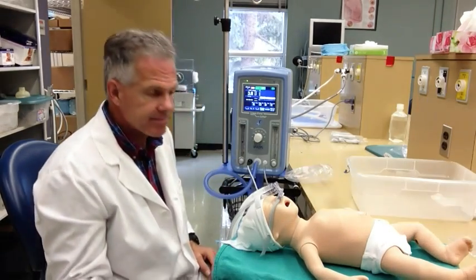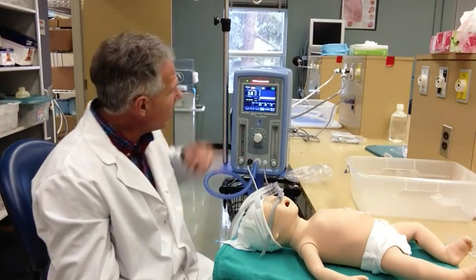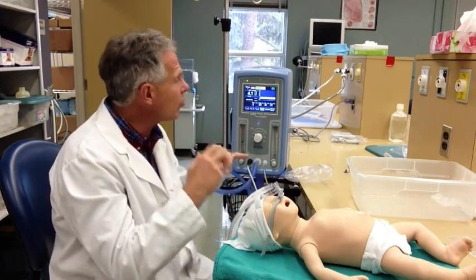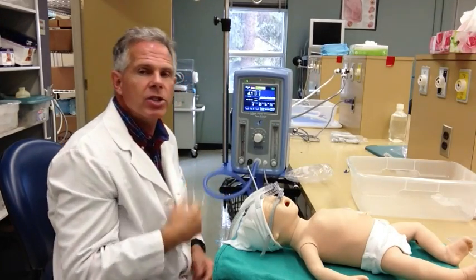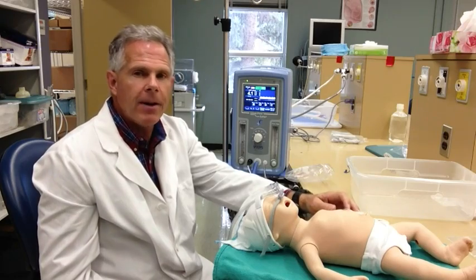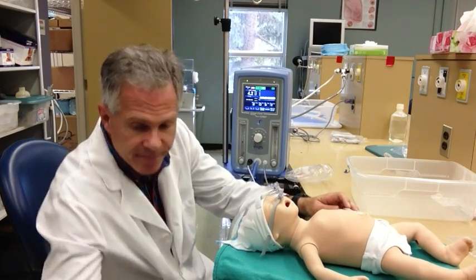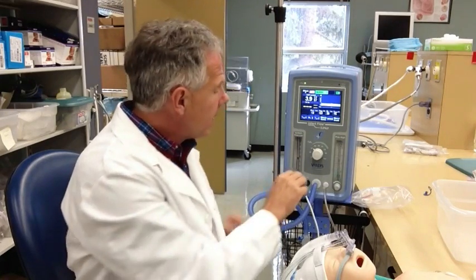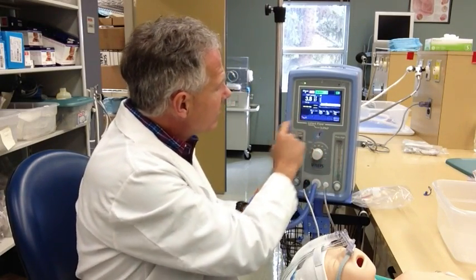The alarms on this ventilator are set automatically - you don't have to do anything to set up the alarms. Once our apneic period has gone through, so it's been more than 15 seconds, it kicks in giving us the backup rate of 20 and gives us an alarm. You can silence the alarm just by tapping it. If the patient starts breathing again, the alarms will reset and it'll be green. The limitations of this are that you need this little pressure sensor to make it work, and it's never worked very effectively. It can be moved, and any movement by the patient can be triggered as respirations - handling the patient or if they're lying on it sometimes alters the performance. So it hasn't seen a lot of clinical use. The number one use of this particular device is nasal CPAP - we're going to confirm that nasal CPAP mode just as we see it set up here.